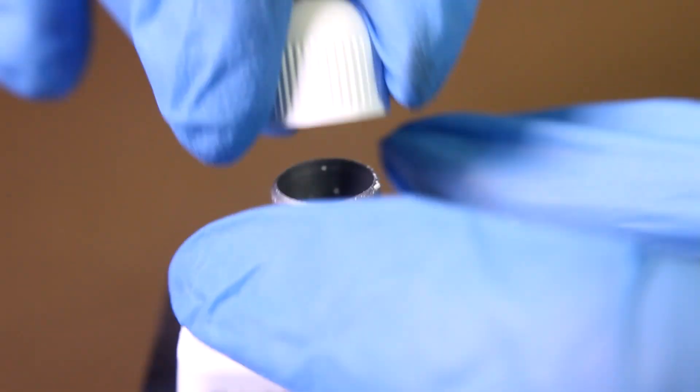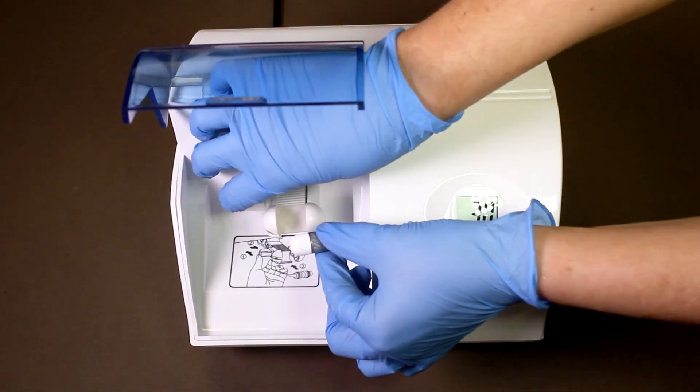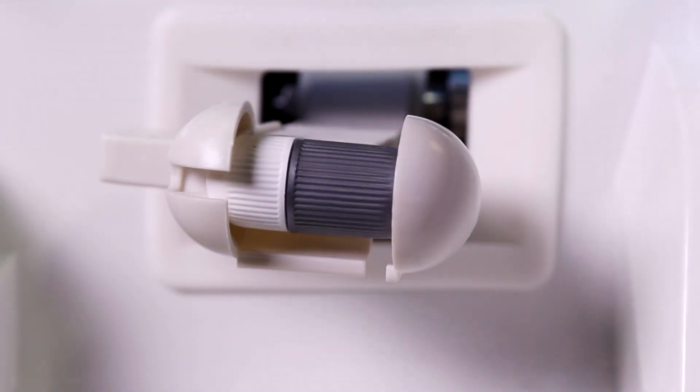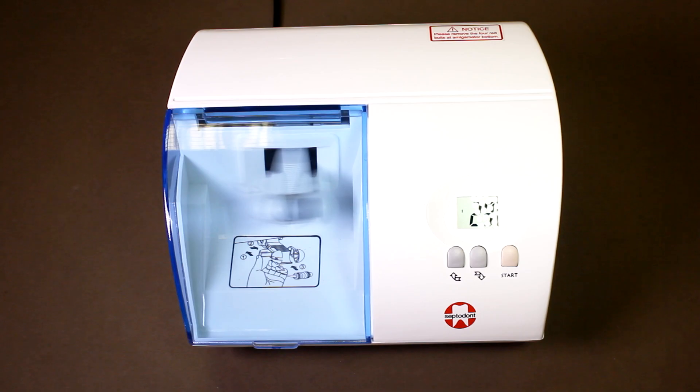Close the capsule with the white cap and place it into a mixing device at a speed of 4000-4200 vibrations per minute. Mix for 30 seconds.